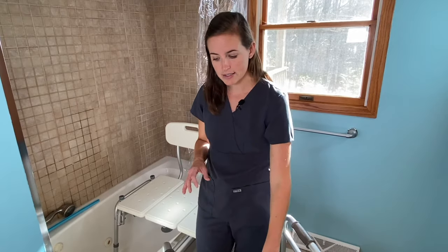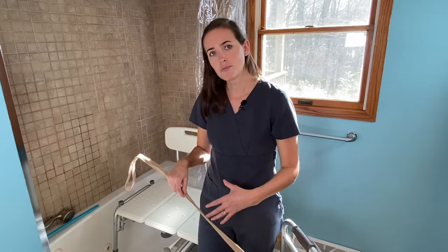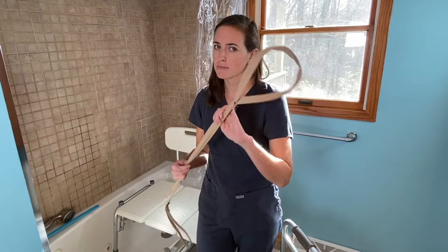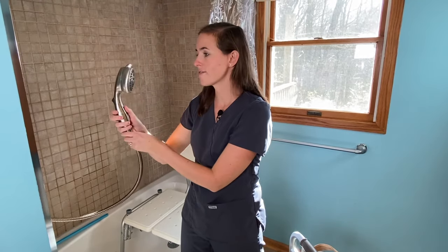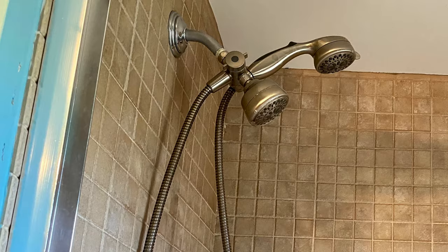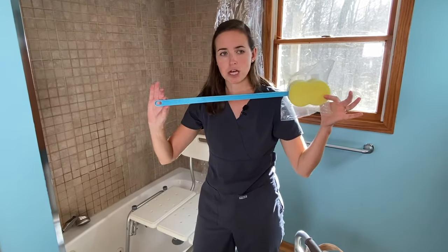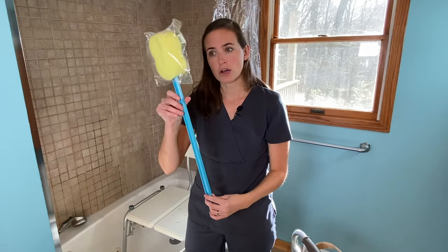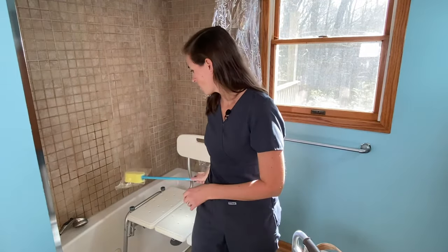The other equipment you will need includes a leg lifter nearby. This is going to be really important, especially if you're completing these transfers by yourself. If you have another person willing to help lift your leg in and out, you may not need it, but if you're doing it solo you'll need it at least for the first few times until you get your hip strength back. You will also need a handheld shower head — I love this one and have had it for years. It comes with a handheld portion as well as a static portion that stays up, making it great for households with multiple family members. I also have a long-handled sponge — the classic hospital-grade one you'd get with your hip kit — and I'll show you the best way to use it, including a trick for getting your back and legs while you can't bend.